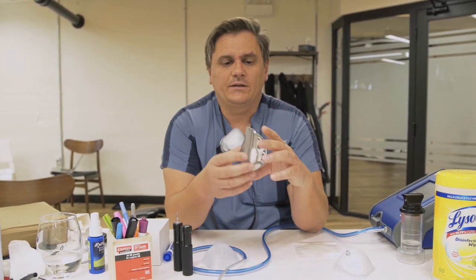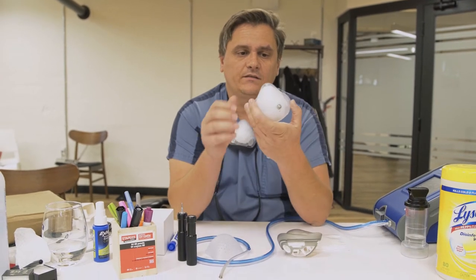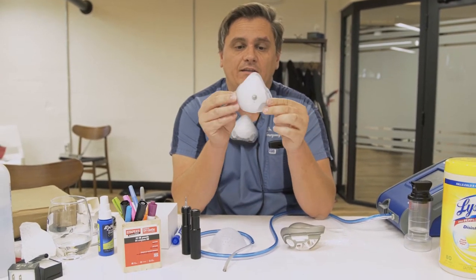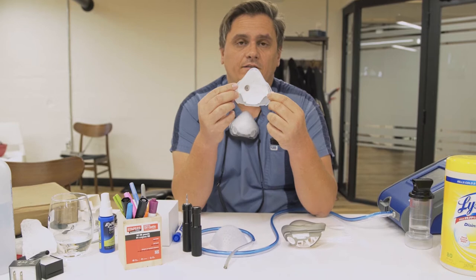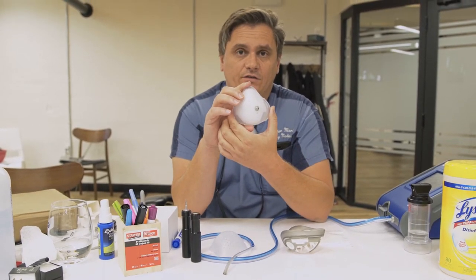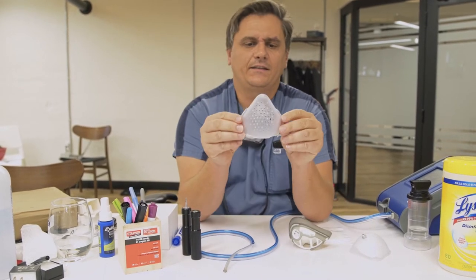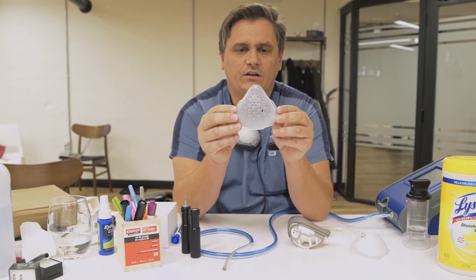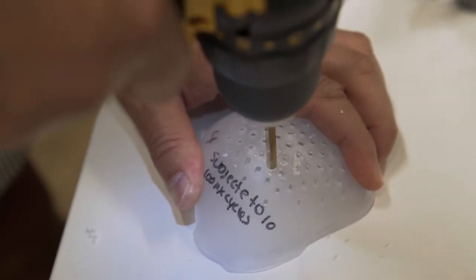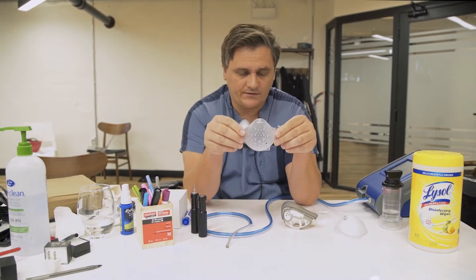What makes the O2 curve a little different is that you need to get a grommet onto the shell and into the filter. We've designed a specific clear shell to allow you to do that consistently. If we look closely at the mask fit test clear shell, there is a single large four-millimeter hole off to the left-hand side — that's where the grommet is going to go through, and I'll show you how that's done.